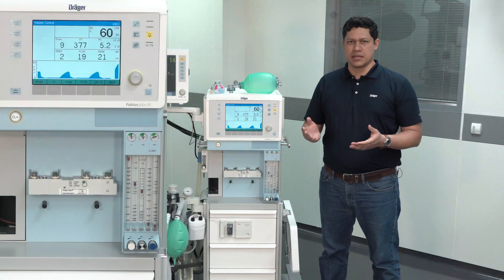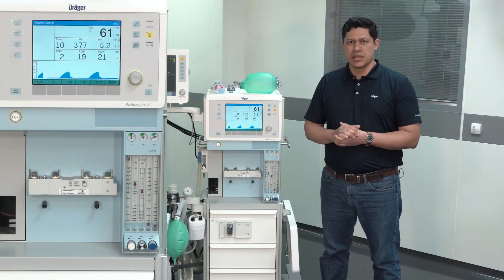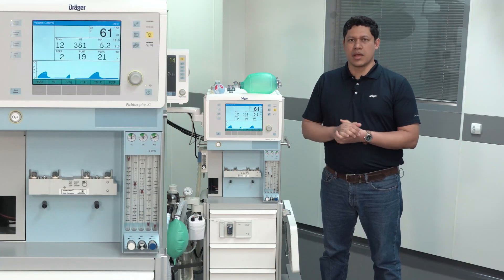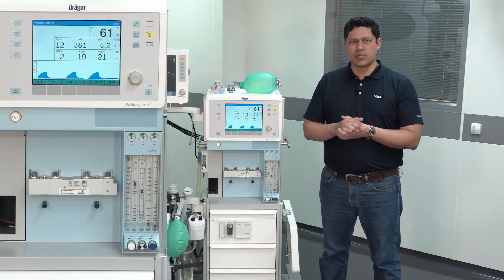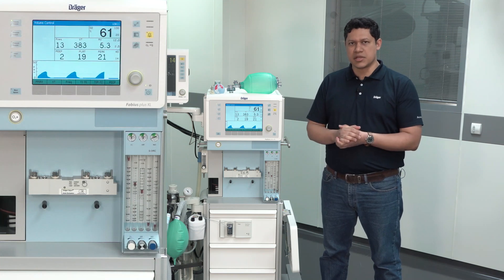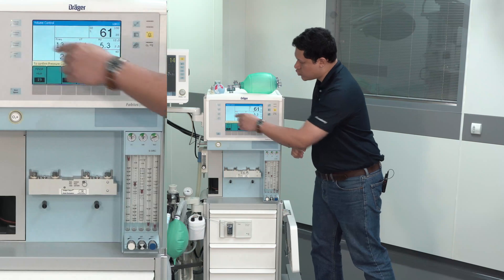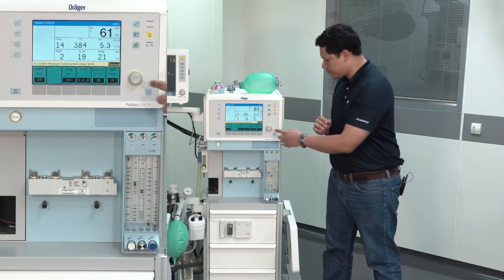Keep in mind: in volume control ventilation, there is no automatic compensation of leakage. That is the reason why pressure control ventilation mode should always be preferred in the case of leakages. To do so, just select pressure control and confirm using the rotary knob.